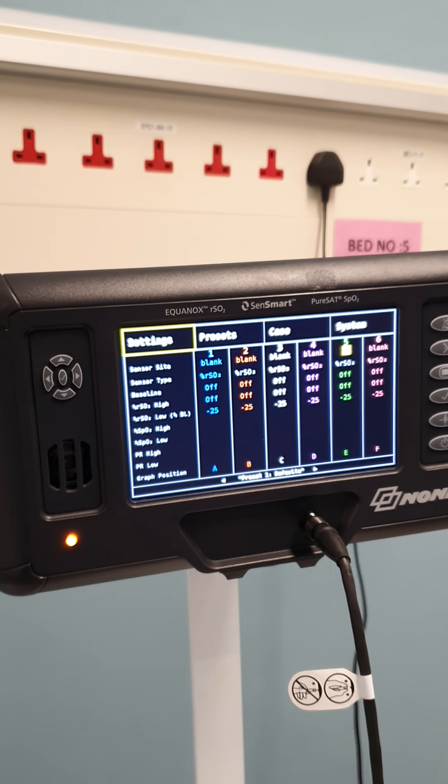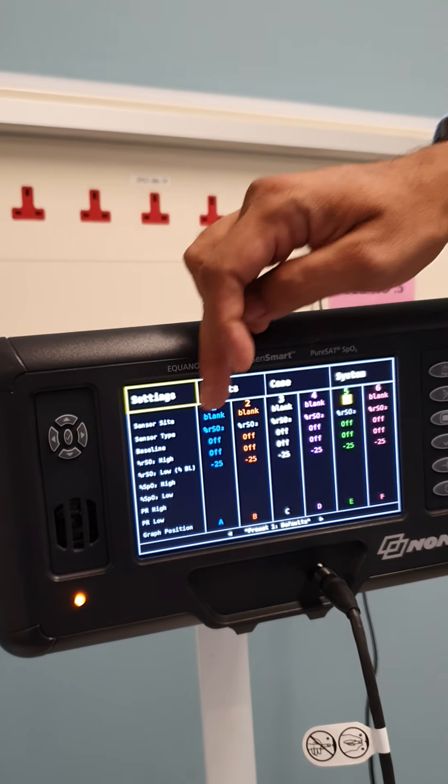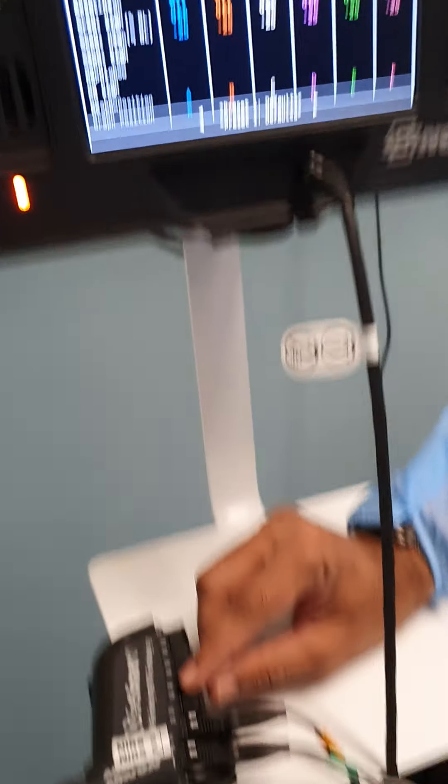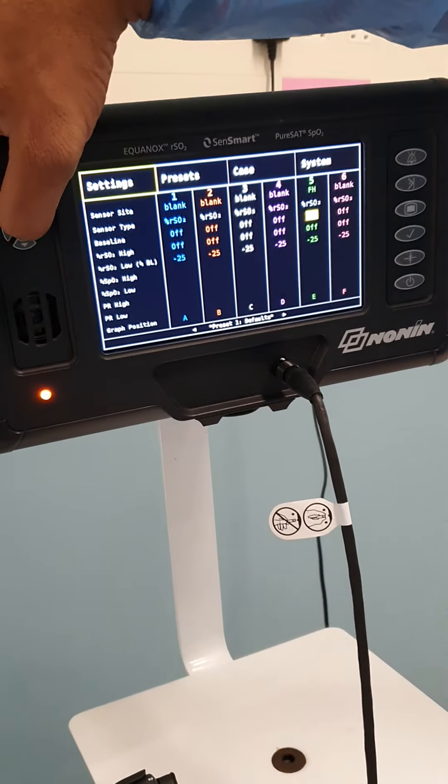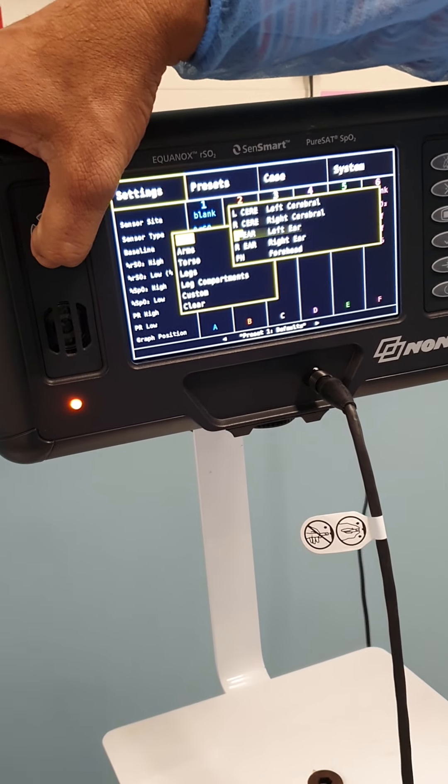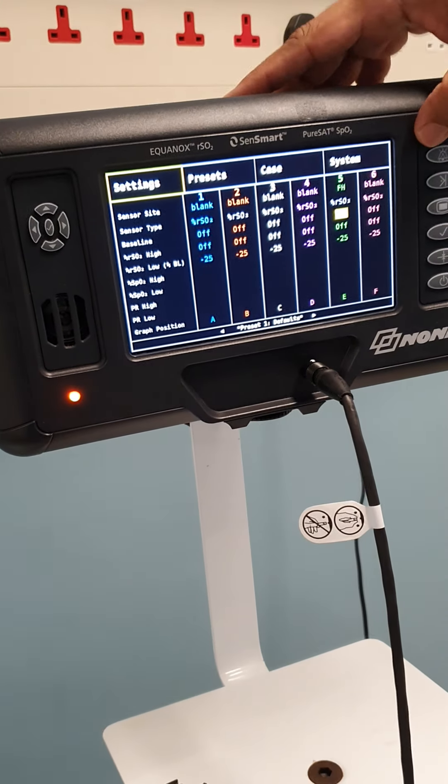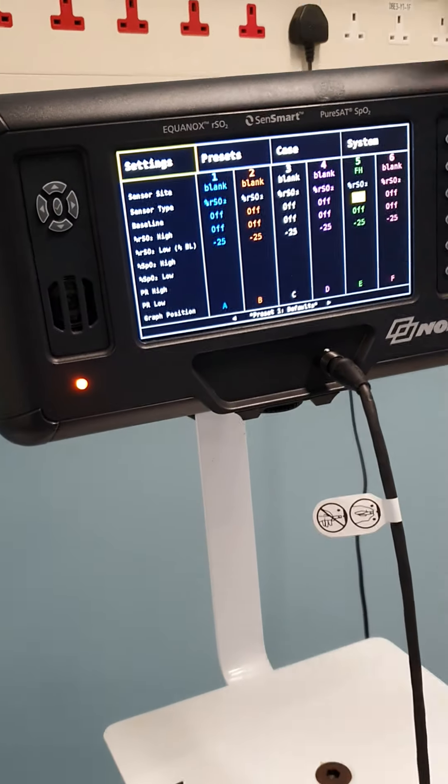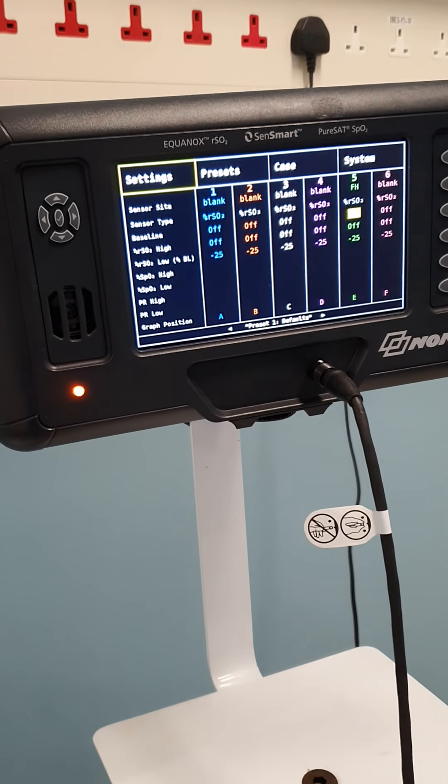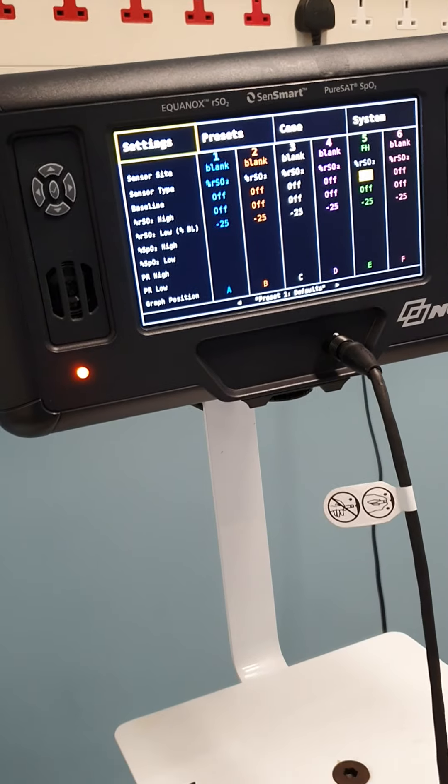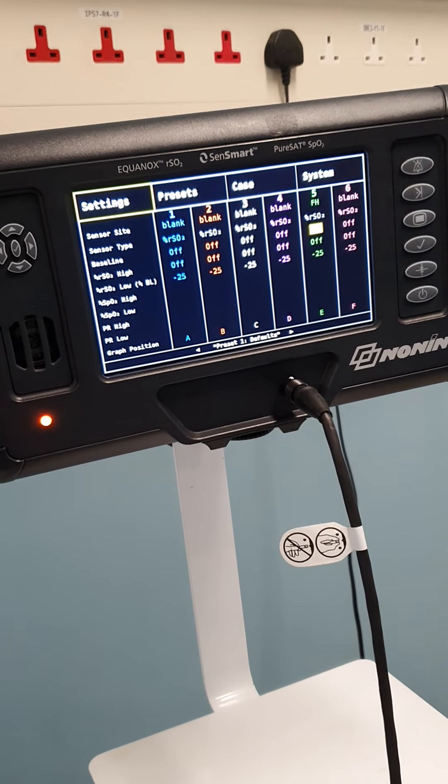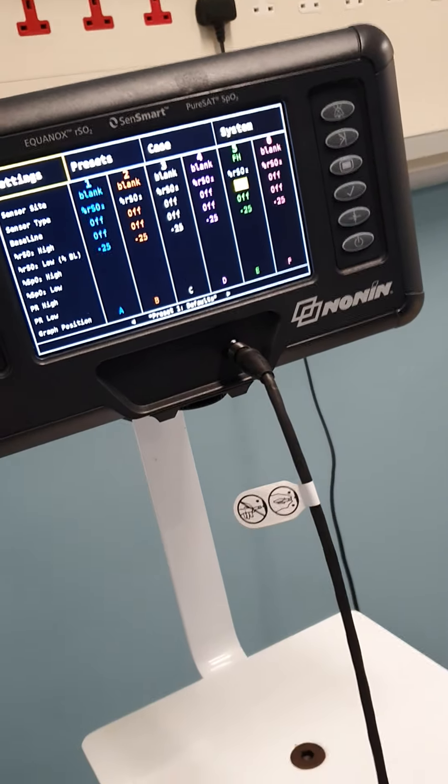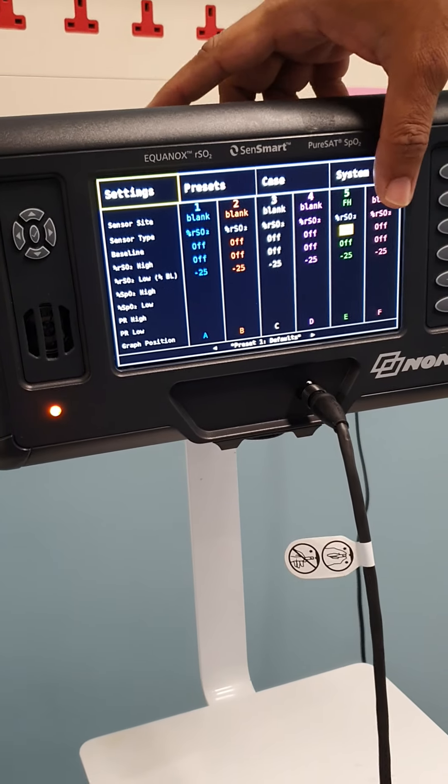Then you can see the sensor type. Here we also have an SPO2 connection option. Currently for the demo, I don't have that sensor with me, but you can also connect the SPO2. It will calculate the SPO2 and give you the readings. It will give you SPO2 and RSO2. Then you can see something over here is baseline option. We usually keep it optional, but depending on the clinical requirement, some doctors say they want a specific baseline like 65 and 60, depending on your experience. That depends and you can make it permanent. Or we can select it later on also.